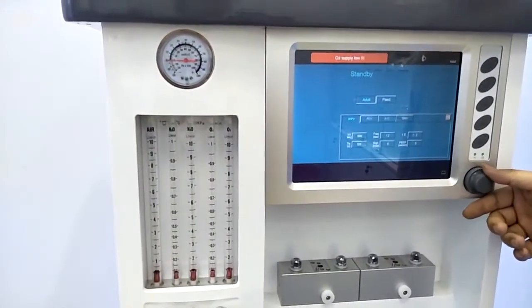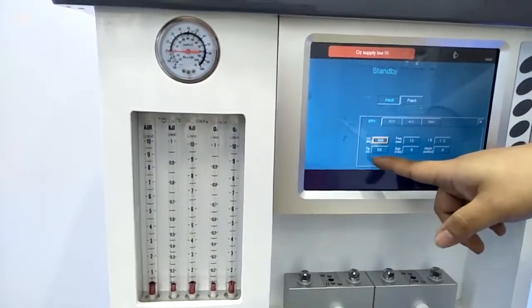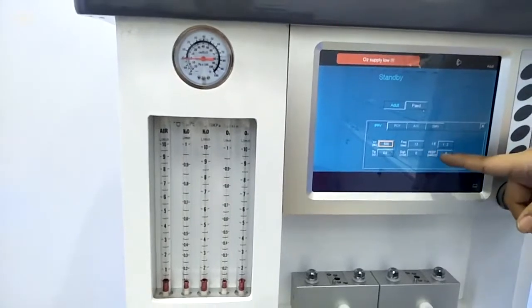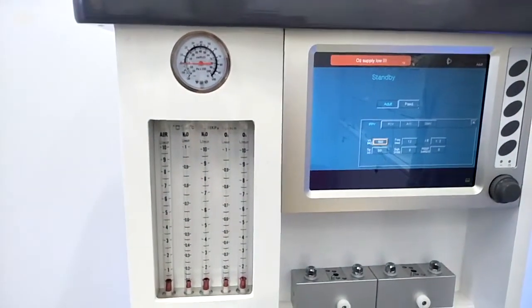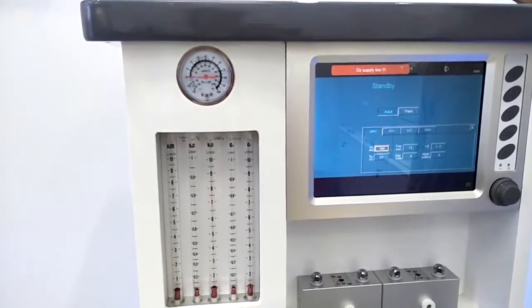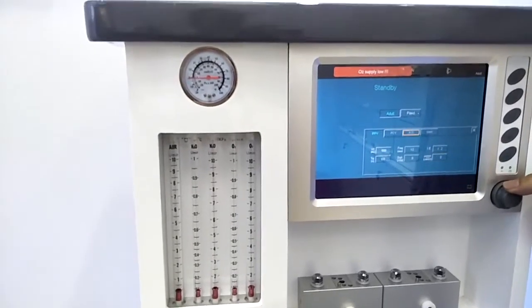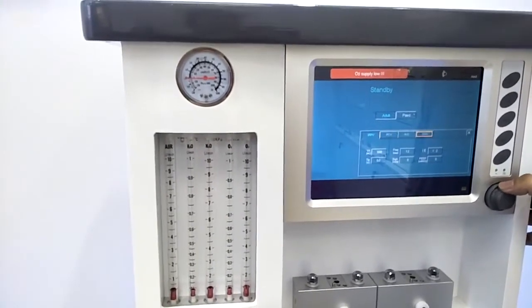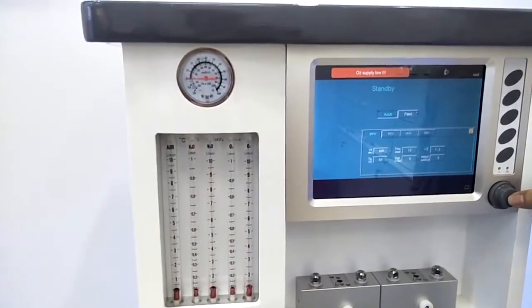Under each of the ventilation modes, we can check the tidal volume, frequency, IE ratio, time, and also sigh and PEEP. The sigh is also a special ventilation mode for our machine, because we know normal people, after breathing for a long time, will take a long breath, so it can make the patient much more comfortable. Once we set all the parameters, we just move to here and press the rotate button again.